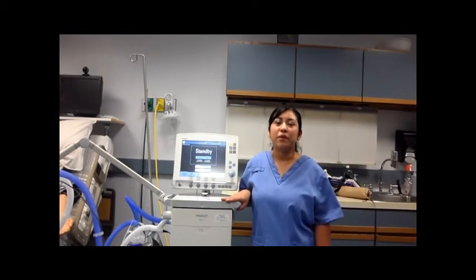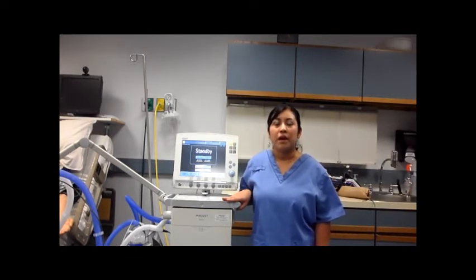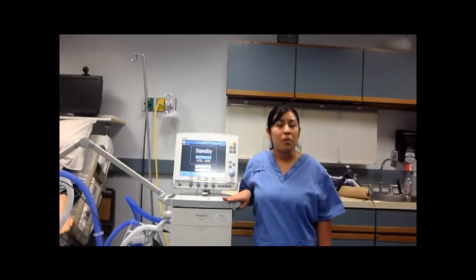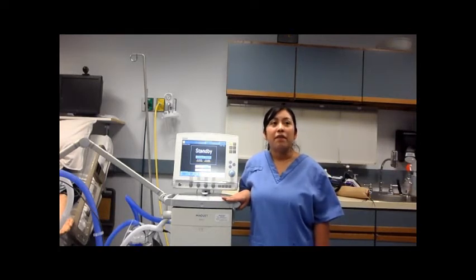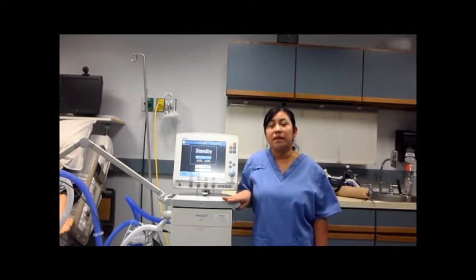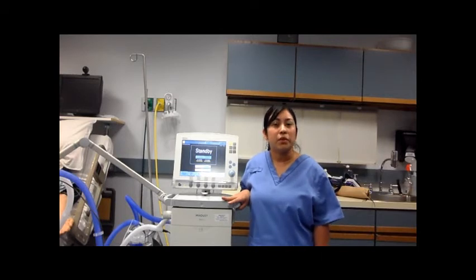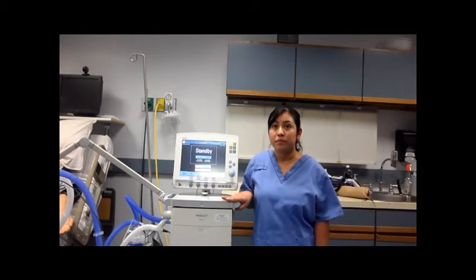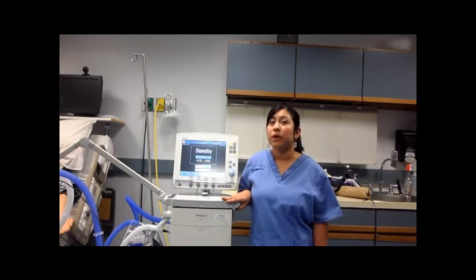In other parameters, we also have to assess our patients and their vital signs. We're looking for respiratory rates less than 25. We're looking for adequate expiratory tidal volumes. We have to check their ABGs and make sure that they're close to normal for the patient. We also want hemodynamic stability. We don't want our patients on high-dose vasopressors. Since they are spontaneously breathing, they need to be on minimal sedation or no sedation at all. We are also looking for peak pressures to be low. If they are high, we should consider putting them into another mode.